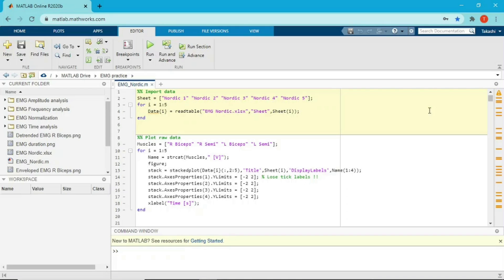This time I want to go one line by one line so you understand my code more after watching. My code is kind of long — I wanted to make it as simple as possible, but to do that I had to make it longer. My plan is to explain one section by one section in each video, so if you have a question you can find the section and watch the particular video.